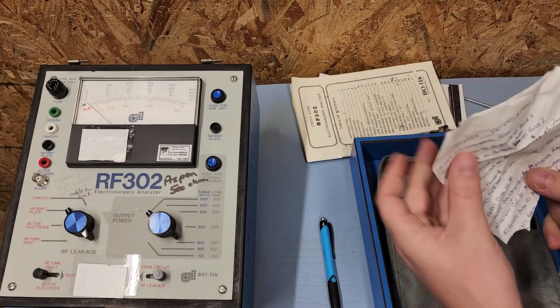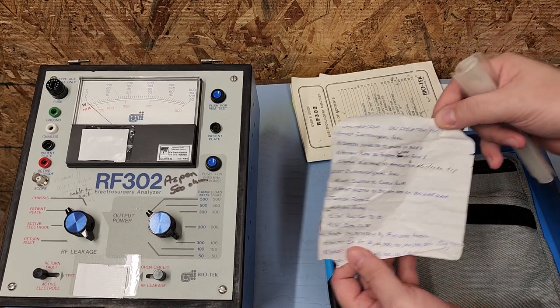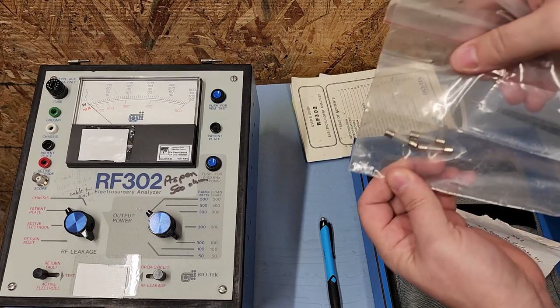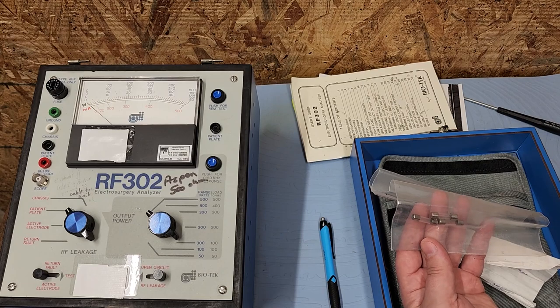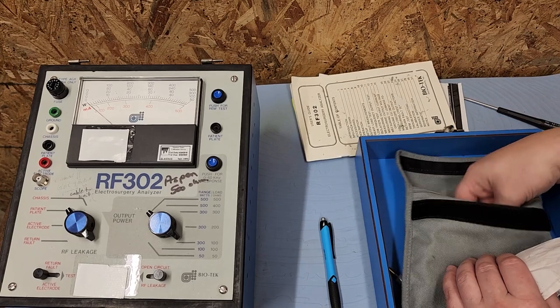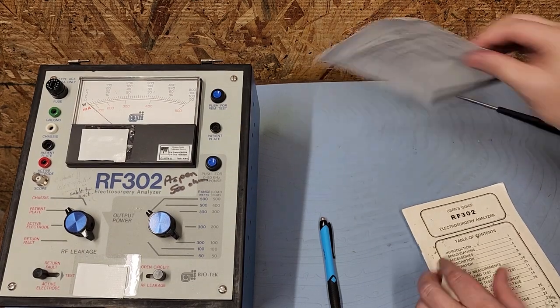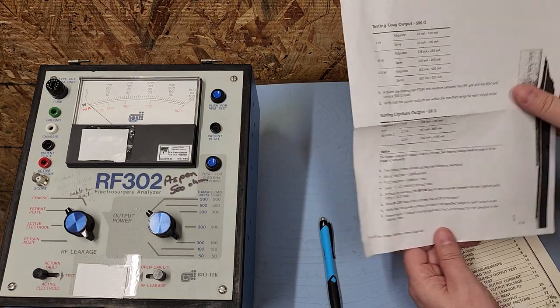We have some vintage notes — take a look at that. Step-by-step instructions. I might actually need that. And a bag. You know what they say about bags — they're always iffy. The days of vintage electronics when you had extra fuses because they might have just popped on a Tuesday. That's not how electronics are anymore — if a fuse pops nowadays there's a reason for it. I can tell this guy hasn't been opened up in probably a decade or so.